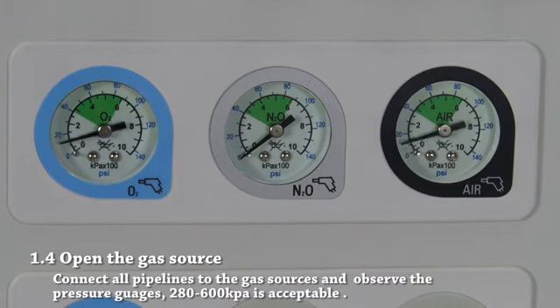Connect all pipelines to the gas sources and observe the pressure gauges. Make sure that the pressure is in acceptable limits between 280 and 600 kilopascals. Part 2. Operation.